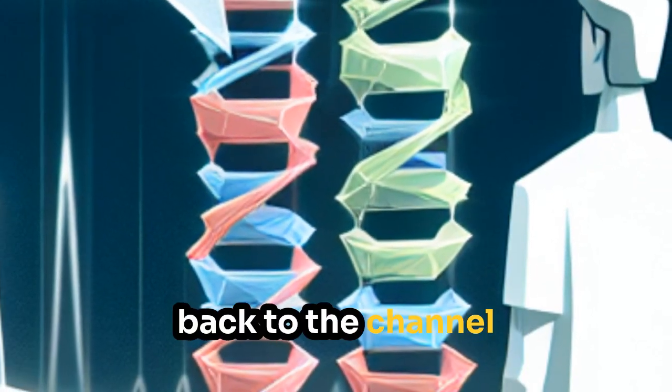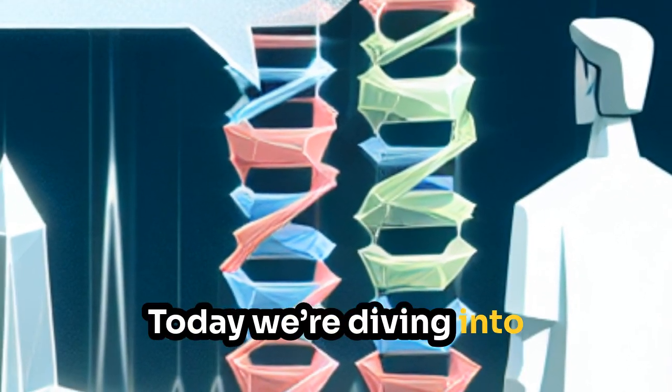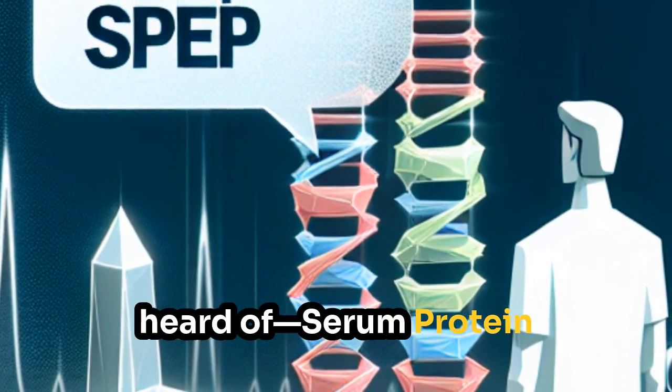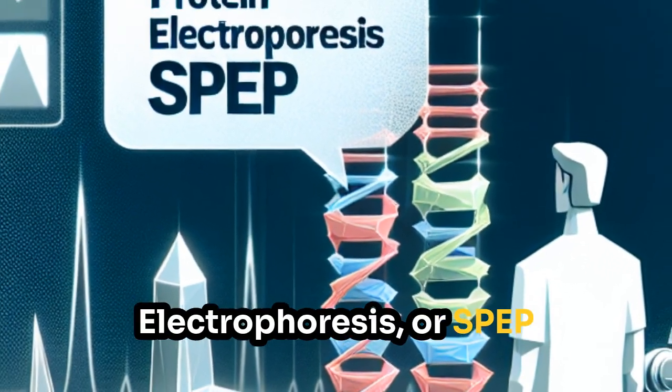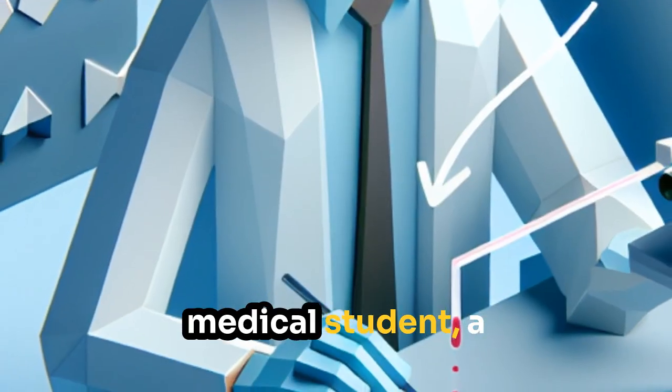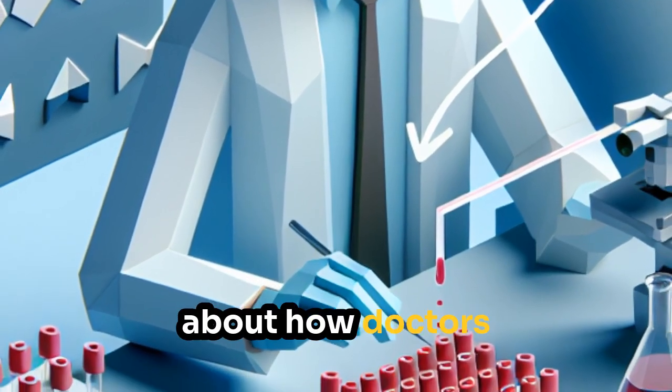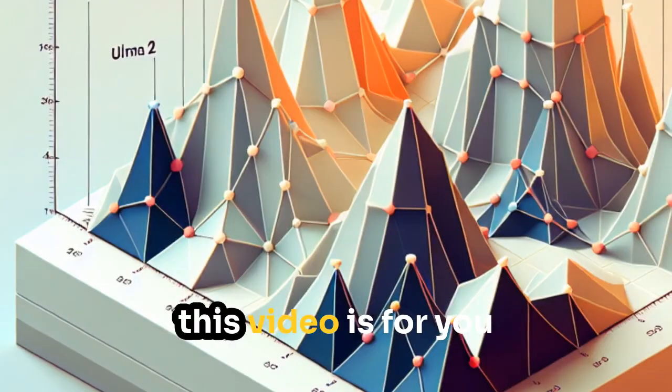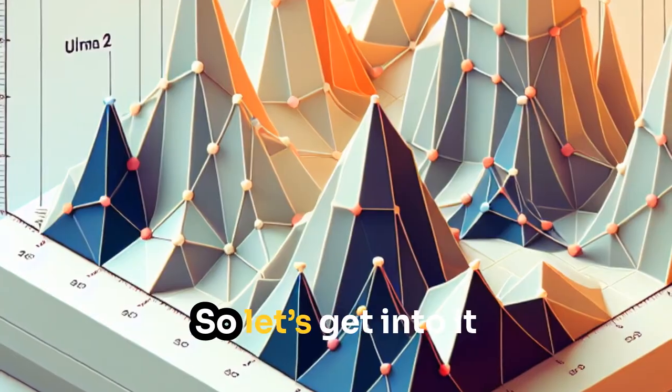Hey everyone, welcome back to the channel. Today we're diving into a powerful diagnostic tool you've probably heard of, serum protein electrophoresis or SPEP. Whether you're a medical student, a clinician, or just curious about how doctors detect hidden illnesses through blood proteins, this video is for you. So let's get into it.